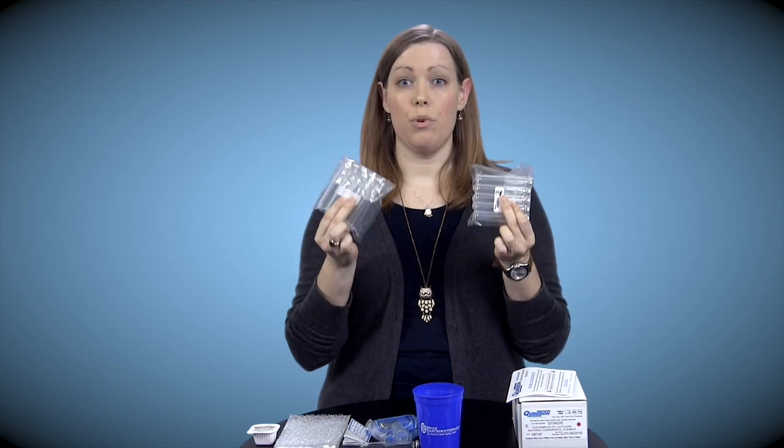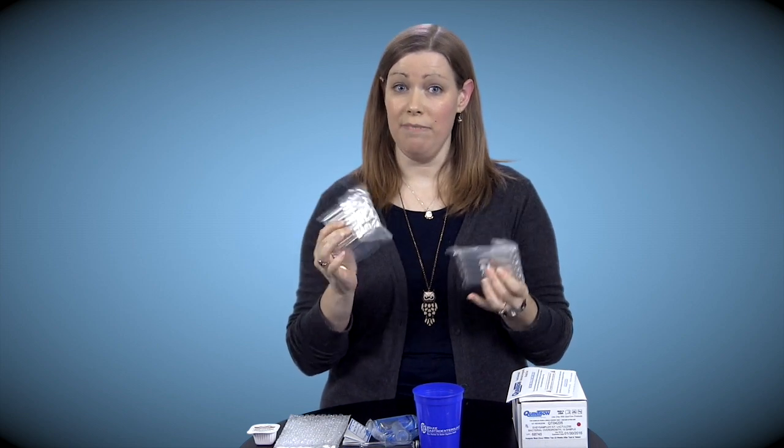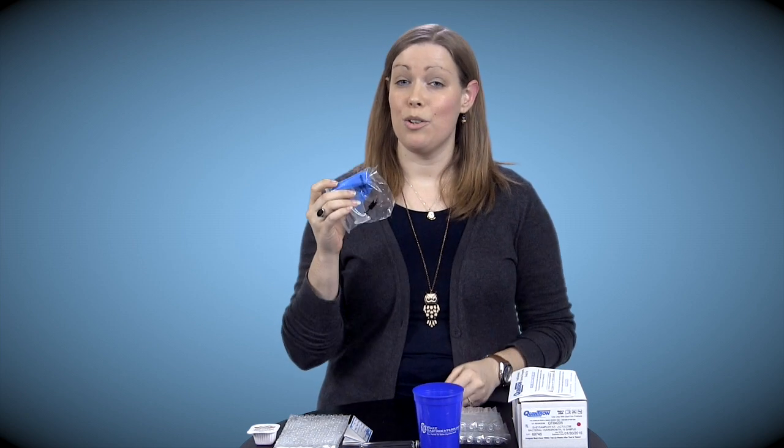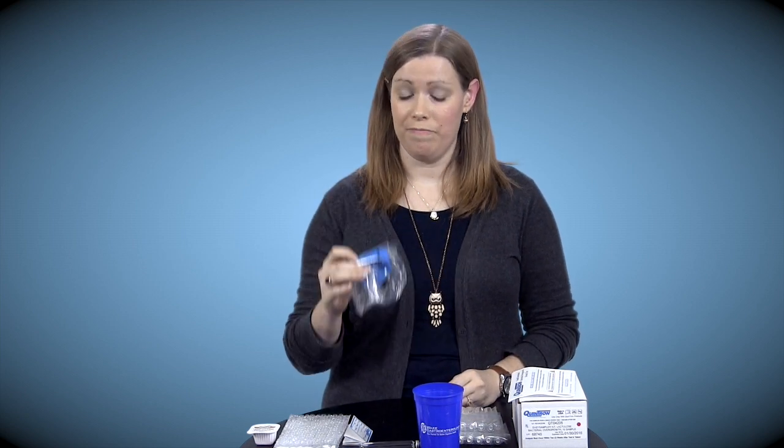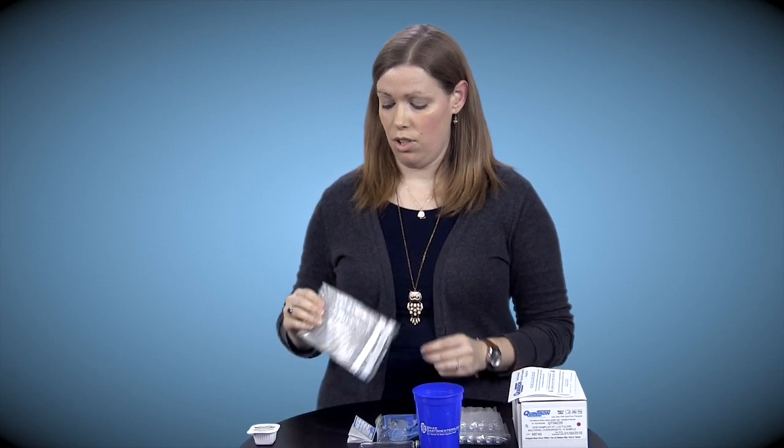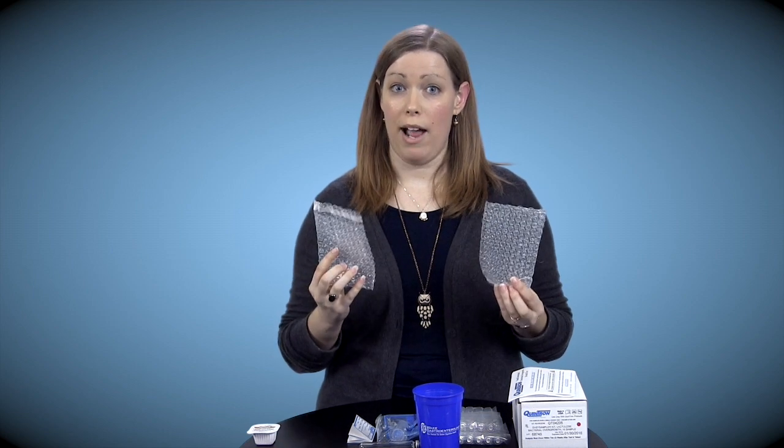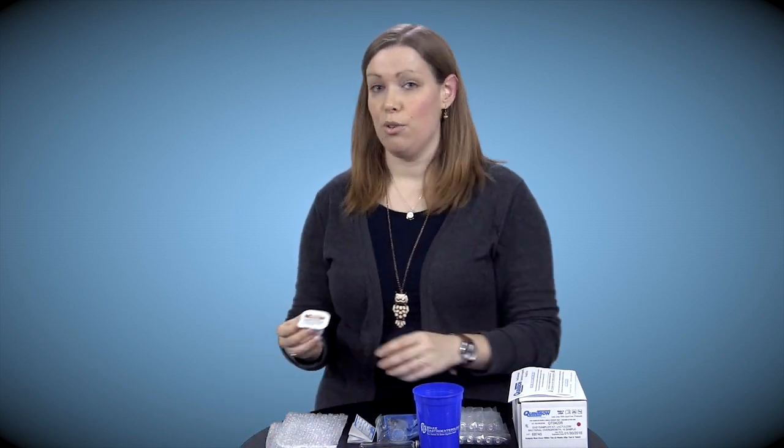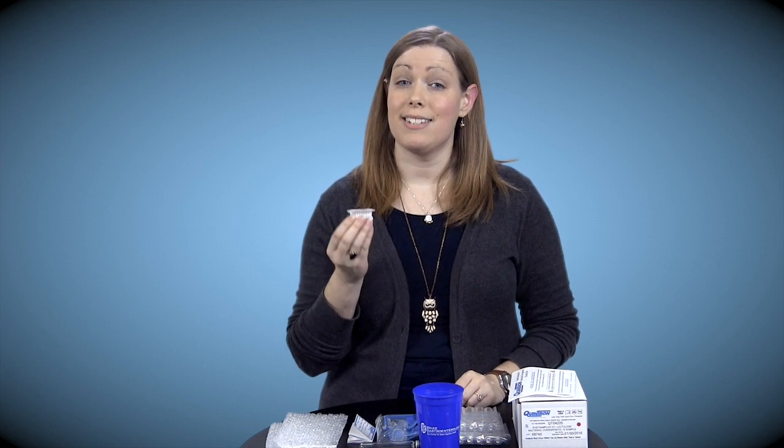The breath test comes in this following box. Contents include instructions, two packs of vials. This is what your breath sample will go inside, a mouthpiece which I will show you closer later, ten labels for the vials, two bubble wrap packets, and lactulose, which is the solution we use to test the breath.